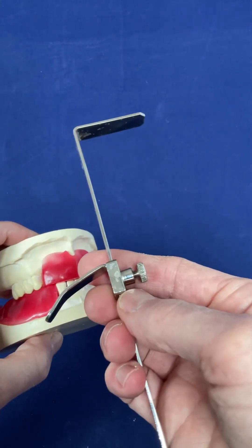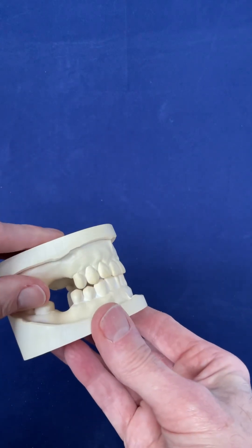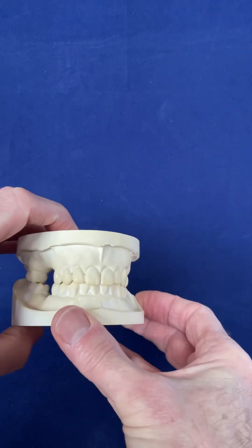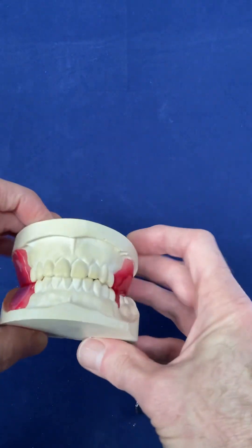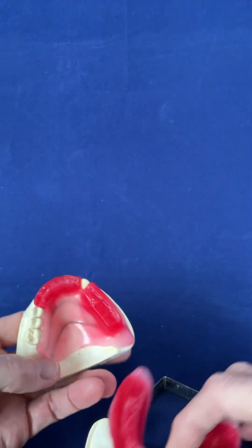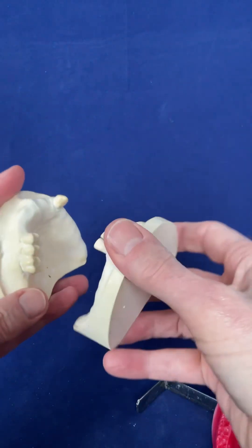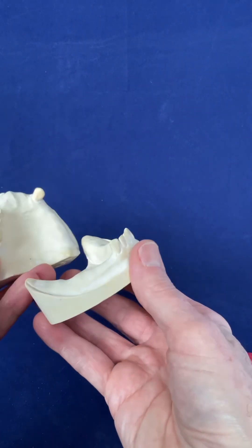So three different registrations. The hardest involves using a Willis gauge. Going back to the beginning: the first patient has a vertical stop — you do not need a Willis gauge. The second situation also has a vertical stop, the teeth meet, the patient cannot over-close — no Willis gauge needed. In the last situation, the patient can easily over-close with no vertical stop, so you need a Willis gauge or some way of establishing the occluding vertical dimension. I hope that's helpful.